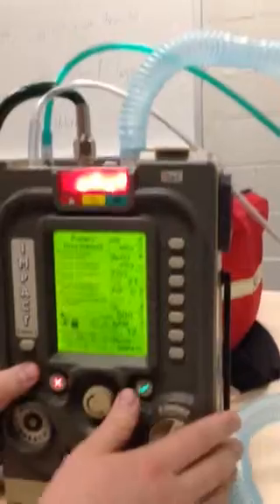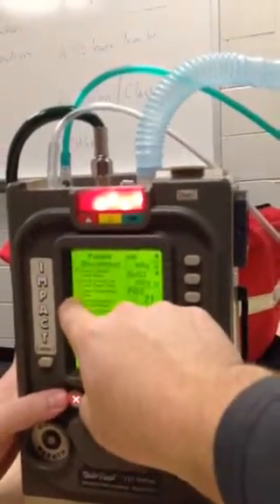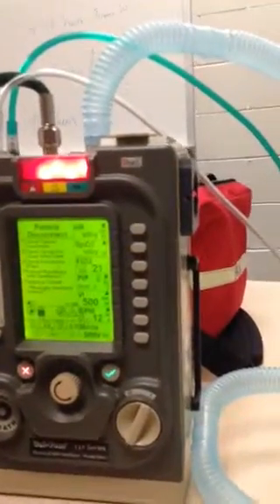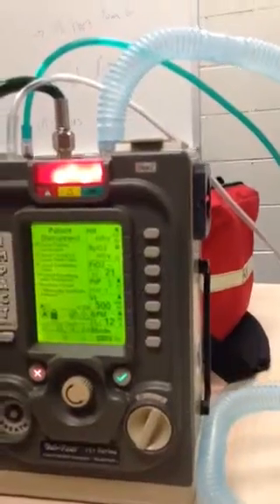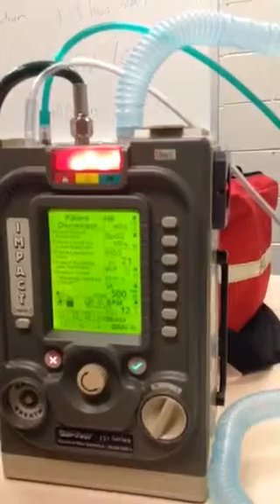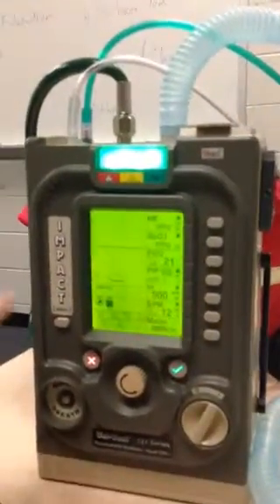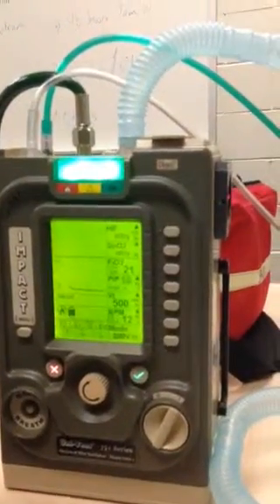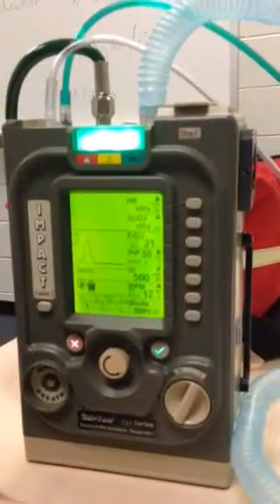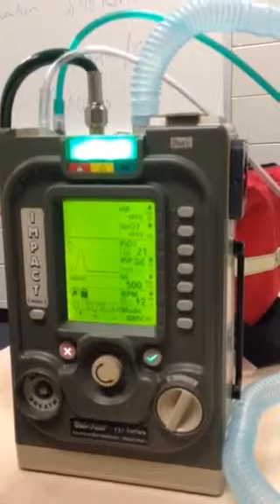Okay, and maybe we could, well, the fake lung's not on there right now. In other words, you would have a graph across the screen that would show you what the patient's peak is, and our protocol states that we need to go 10 above their peak inspiratory pressure. Hope I said that right. So there we go. That went to 35. I don't know if we can see that on the video, but that went to 35. So if we were to set according to protocol, we would go to 45. Is that right, Mike?